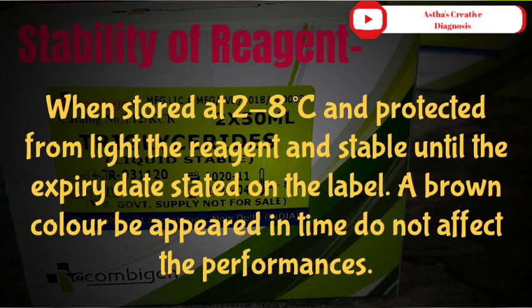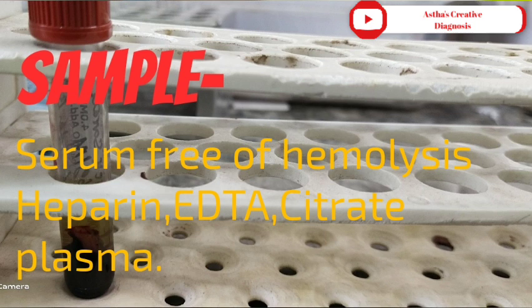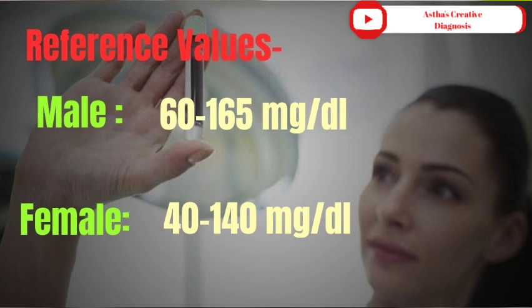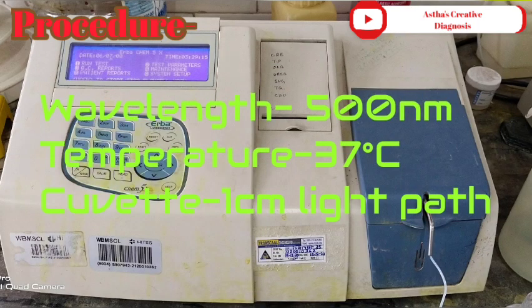Sample: serum free of hemolysis; heparin, EDTA, or citrate plasma are also acceptable. Reference values: for male, 60 to 165 mg/dL; for female, 40 to 140 mg/dL. Wavelength: 500 nanometers. Temperature: 37 degrees Celsius. Cuvette: 1 cm light path.